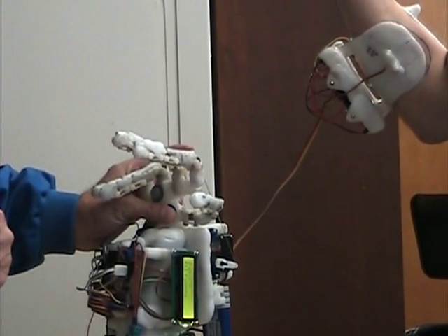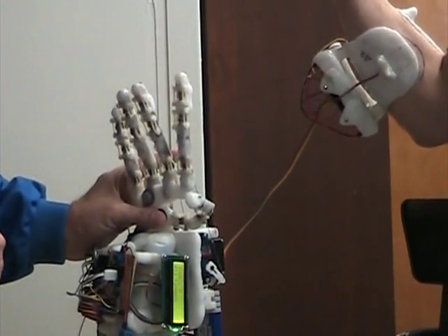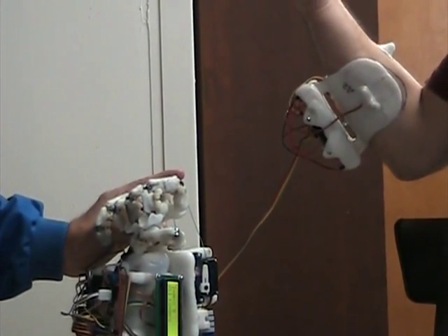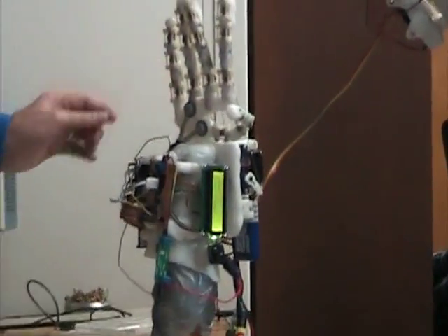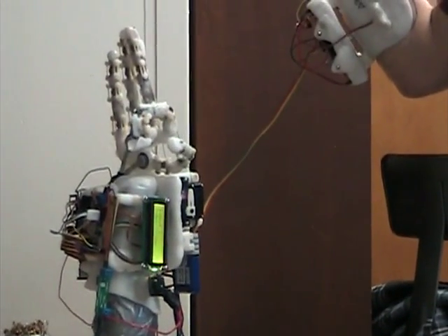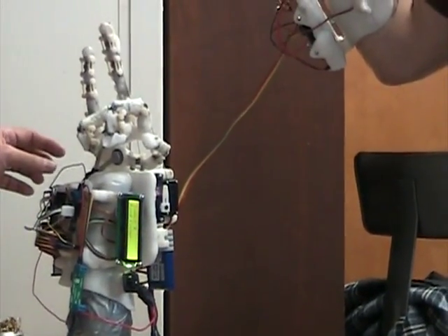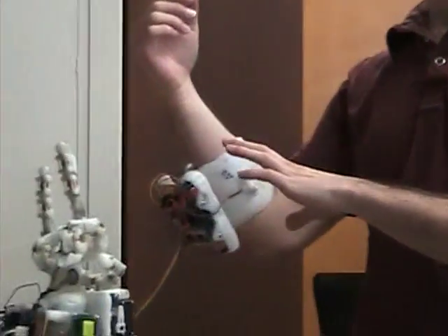So I push toward and it's done. Okay, now do it again — so it opens and then it'll close again. You can also do force feedback with only the thumb, for example. I changed to index, now I change to middle. So depending on how you adjust it, you can have a little cross-talk between the muscles.